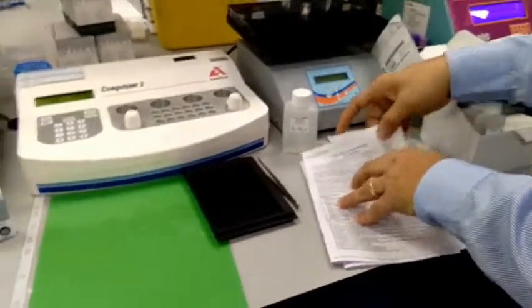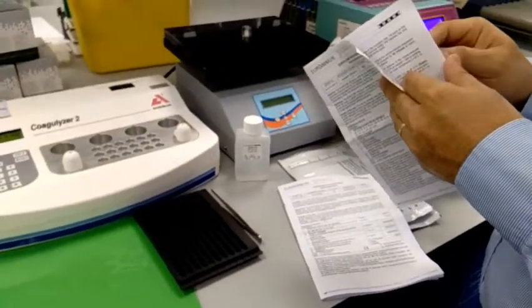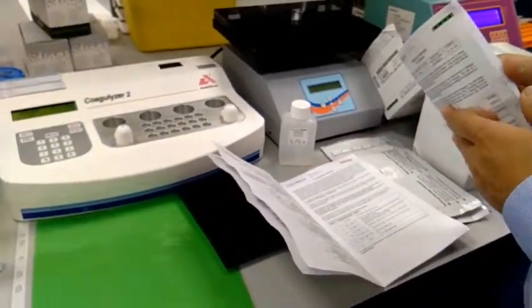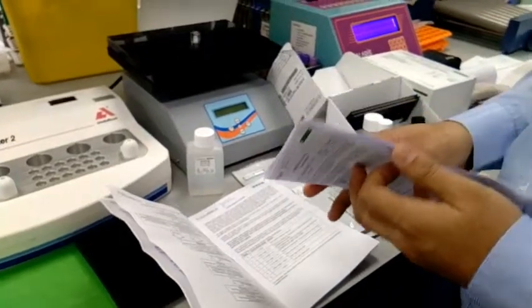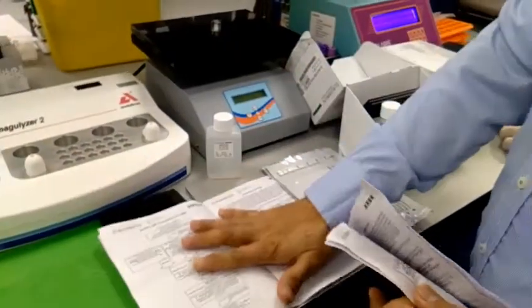In the kit there is a pre-treatment that we have to do. Most likely the same procedure even if it is a different kit — same wash buffer solution, conjugate, and everything. It differs only on the strip. Same procedure.